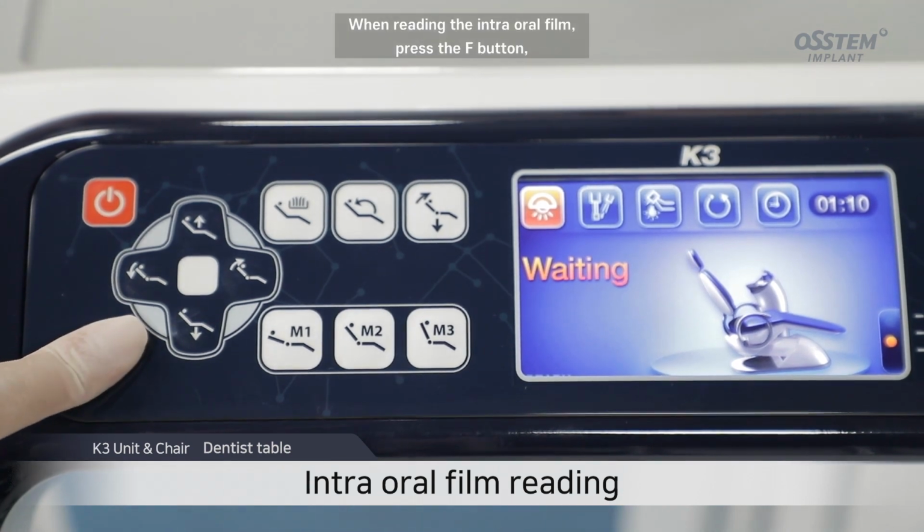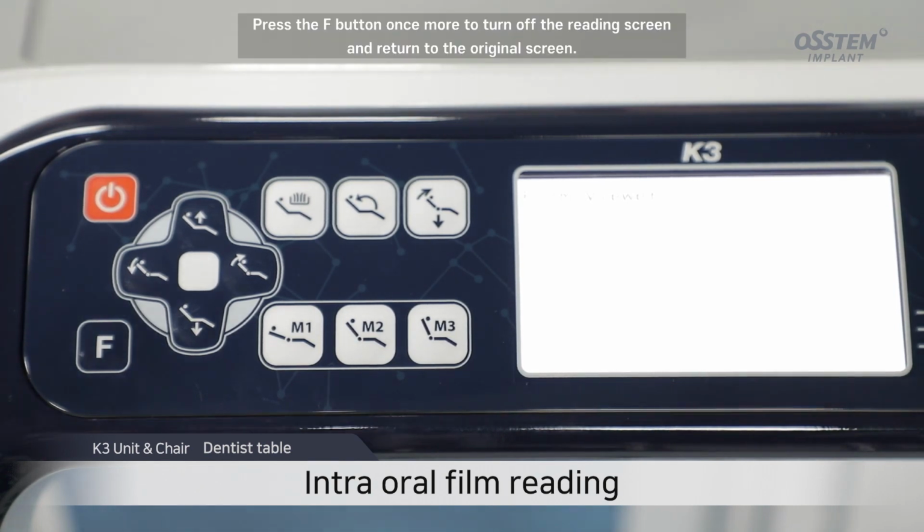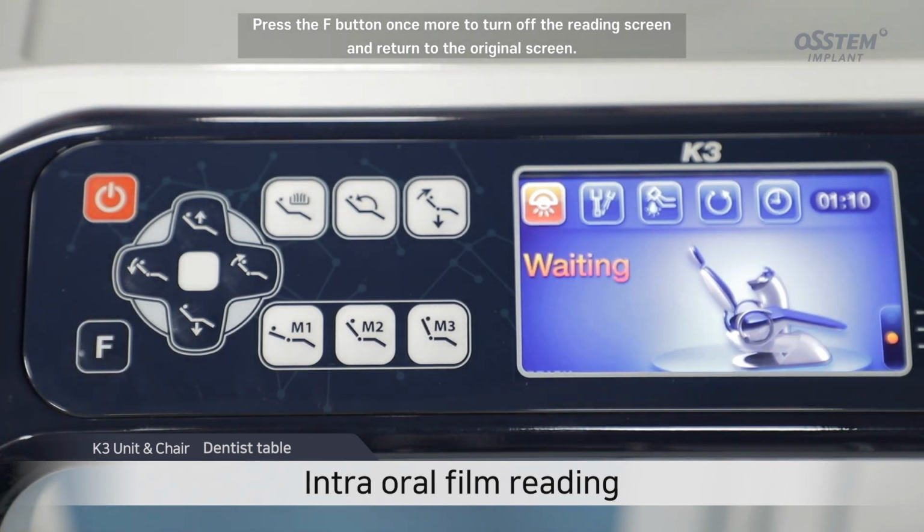When reading the intraoral film, press the F button. Then place the film on the LCD screen to read. Press the F button once more to turn off the reading screen and return to the original screen.